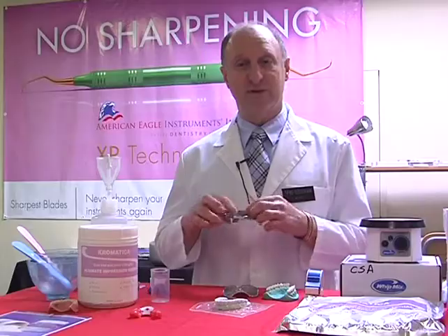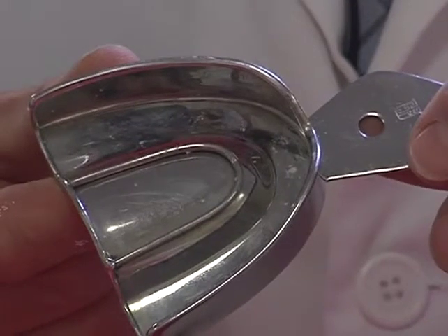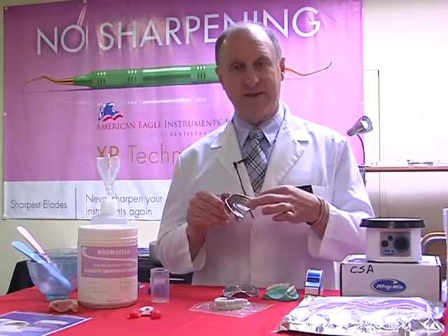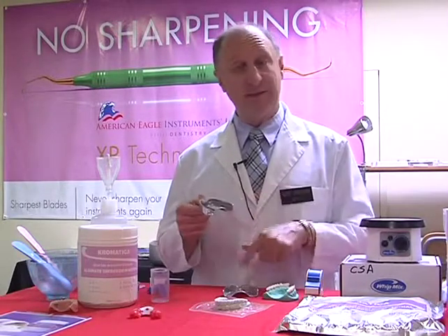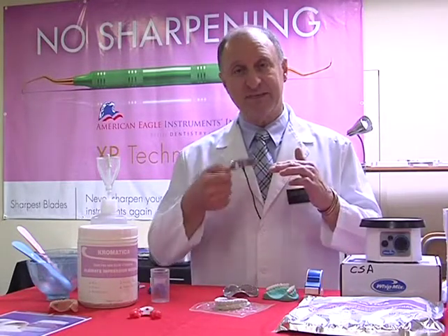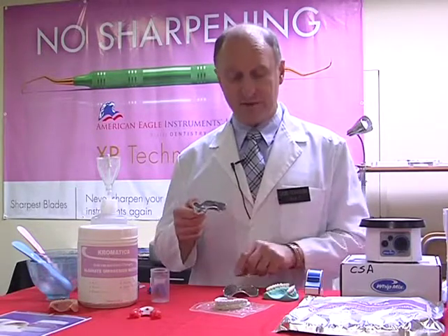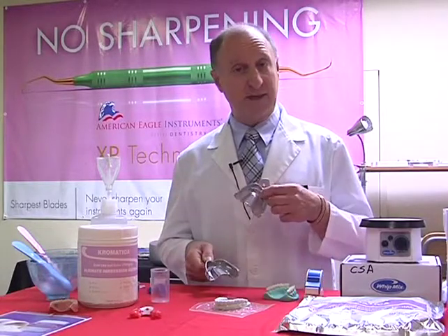Compare that to the solid impression tray. The solid tray, which a lot of people don't like using because they thought it doesn't hold or adhere the impression material as well as the perforated tray. Actually, about 5 years ago, the manufacturers made the rims around and also internally thicker, so it actually gives as much, if not better, adhesion than the perforated tray. When we put the impression tray inside here, the material inside here, the alginate, and compress it, it produces a much more compressive impression known as a mucocompressive impression. So if we compare the two, we get more definition with a solid impression tray versus a perforated impression tray.